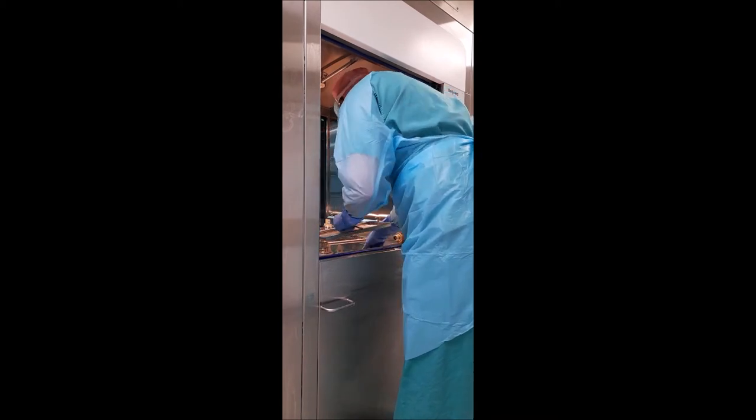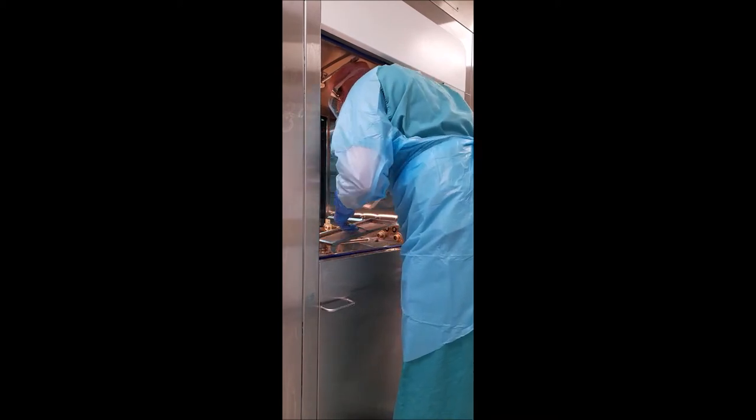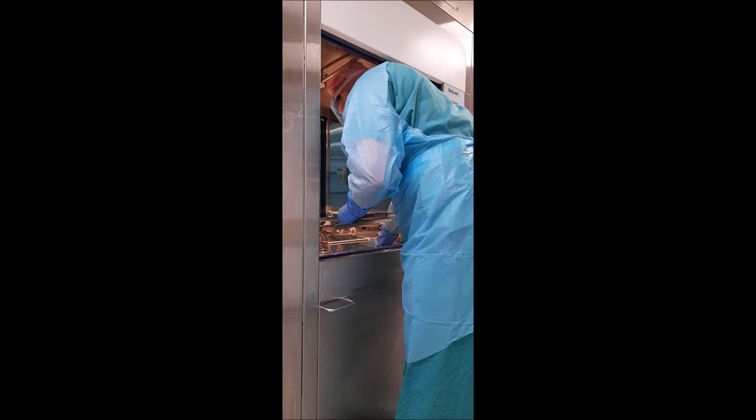We then remove the filters from the washer disinfector and clean off any debris in the sink using appropriate cleaning brushes.